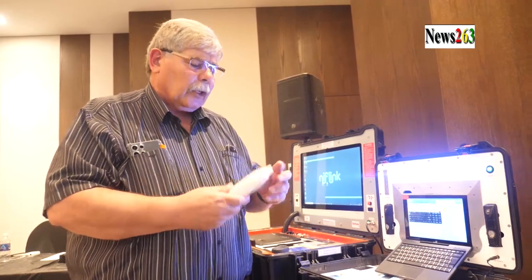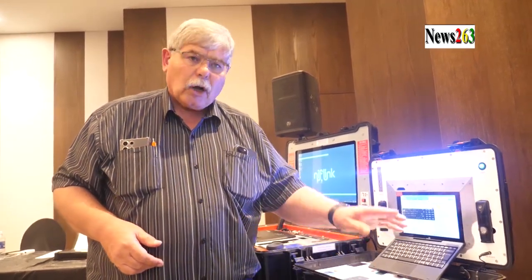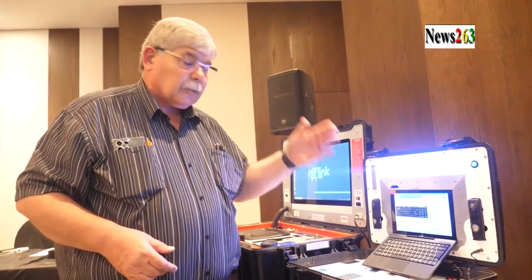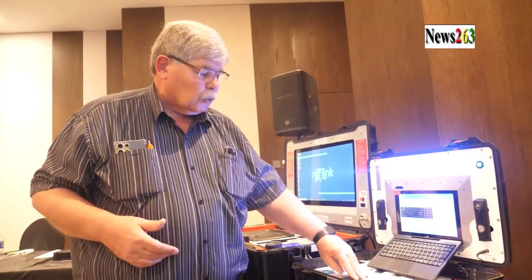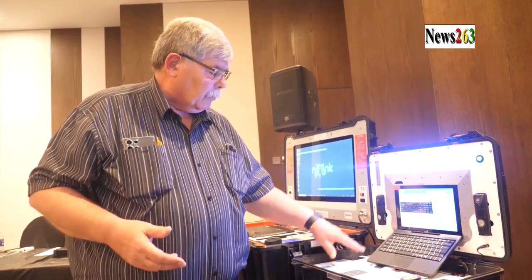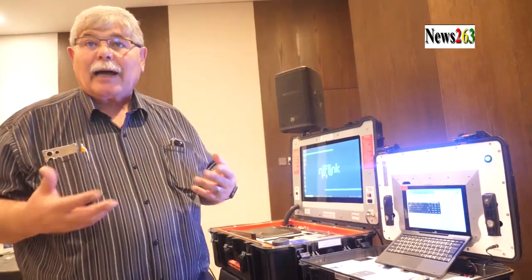In here, we've got temperature, oximeter, urine testing, fetal doppler, spirometry for lung testing, 12-lead ECG, glucometer for glucose levels in the blood, blood pressure, and then you can have a multitude of other tests as well.